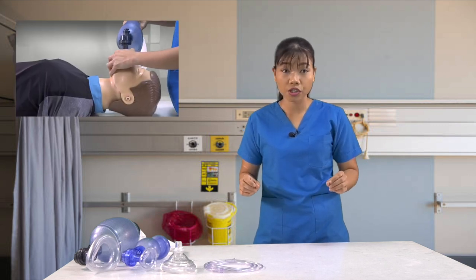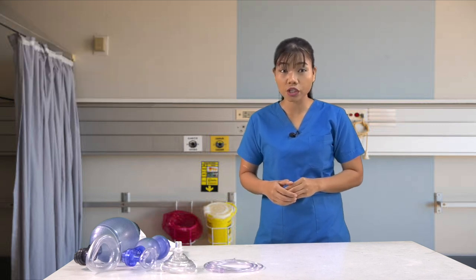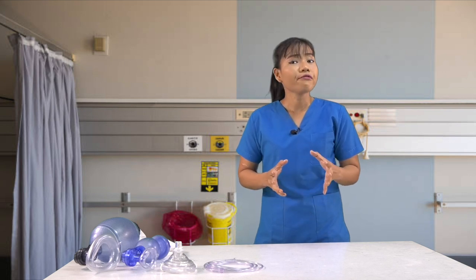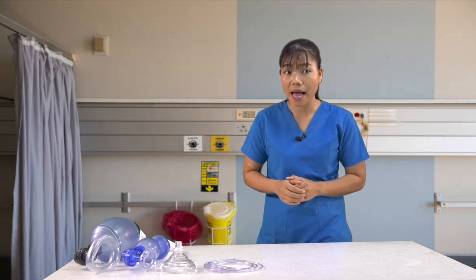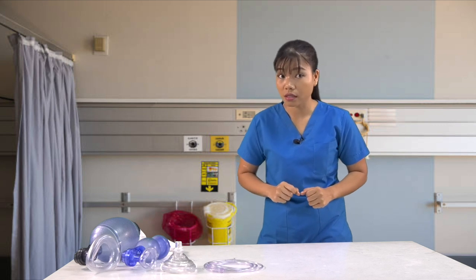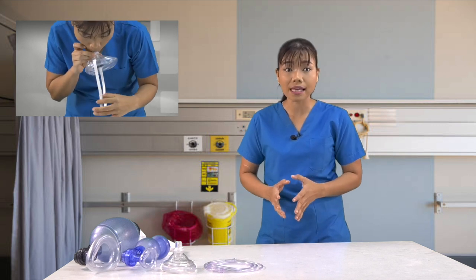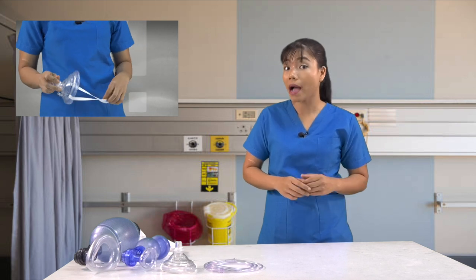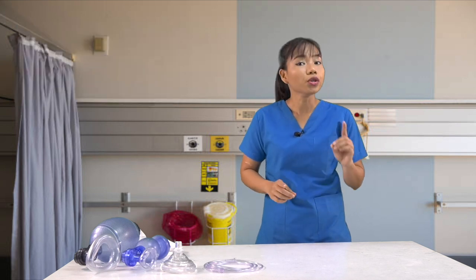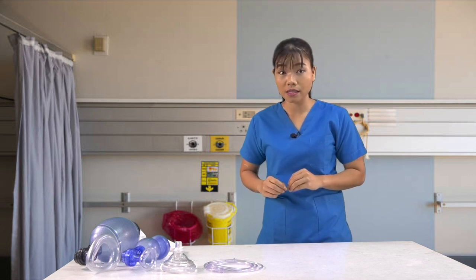If you do not see the patient's chest rise and fall, your seal is not tight and the patient is not receiving the life-saving oxygen they need. If you are not able to deliver rescue breaths successfully using the bag valve mask, don't use it. Set it aside and use a regular rescue mask with a one-way valve and deliver breaths mouth-to-mask. Do not waste time that the patient doesn't have, as they are likely becoming anoxic by the second.